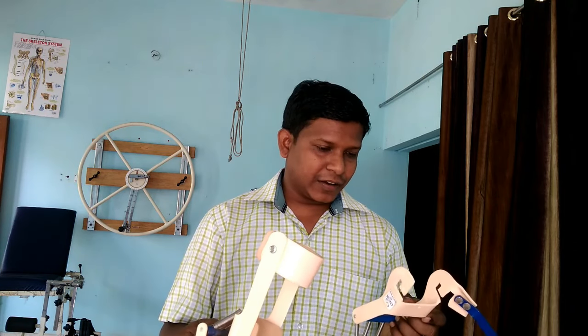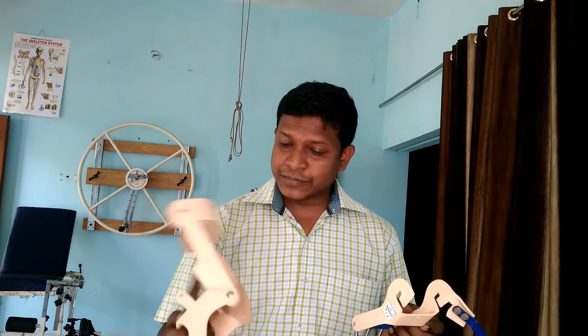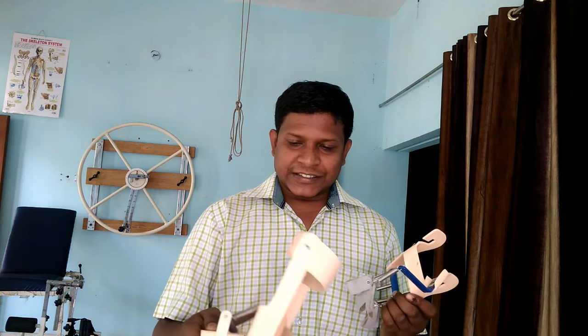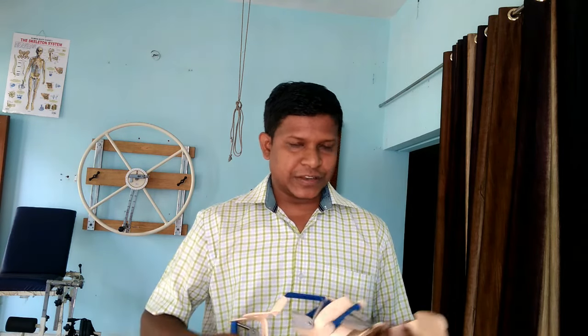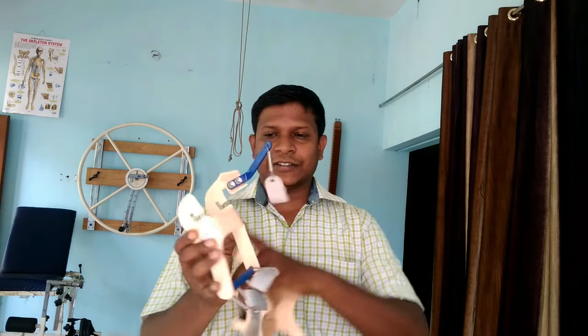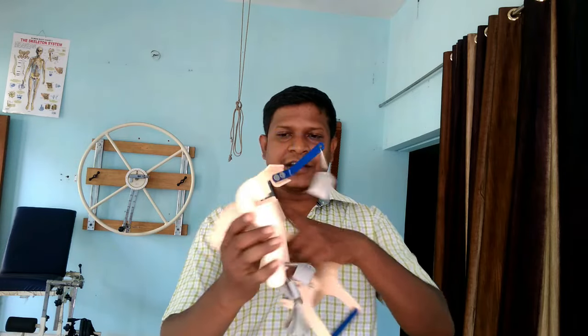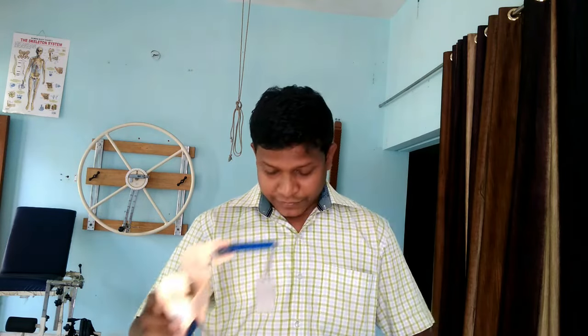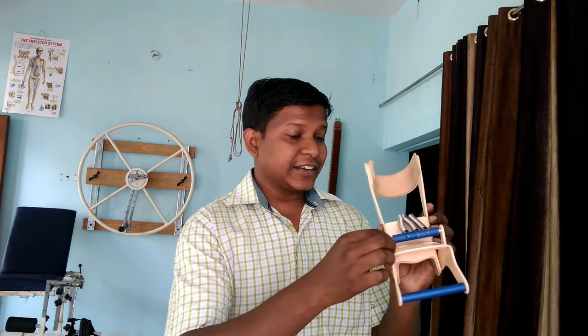This particular dynamic cock-up splint is for the left hand and is of medium size. Let us see how to use it. First we need to assemble it — there are slots here and we have to place the finger extension support into the main body here.